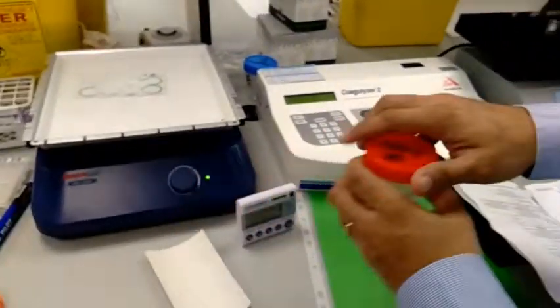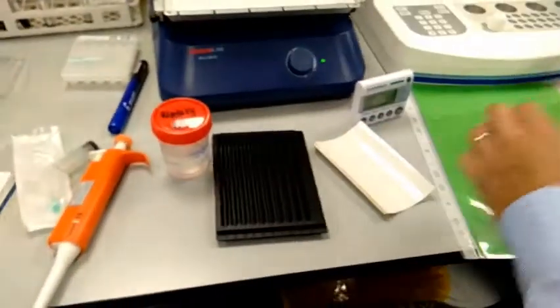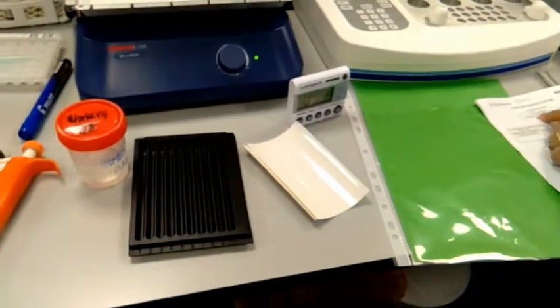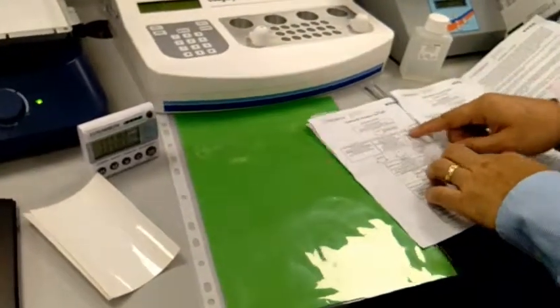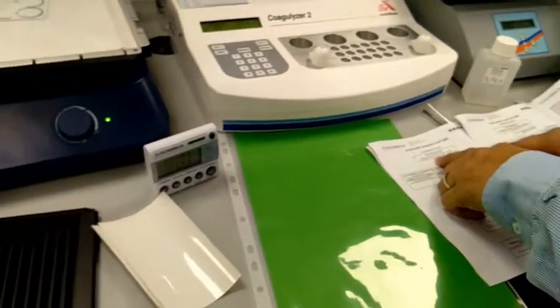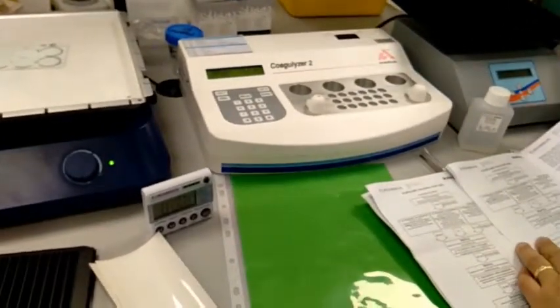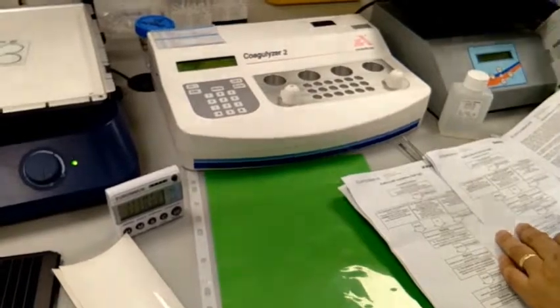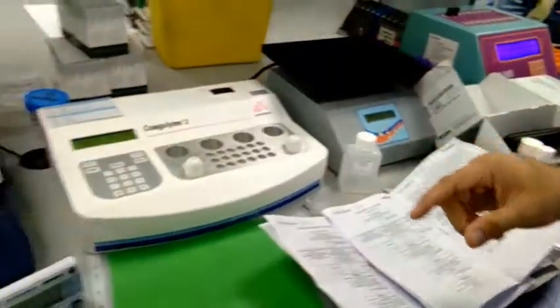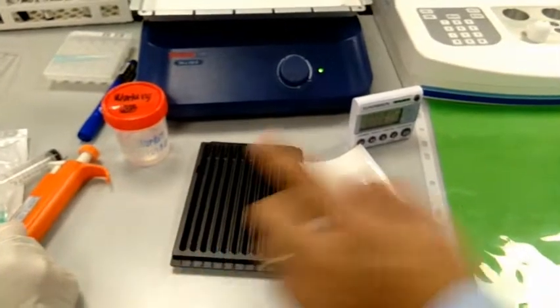Can you put the strip here first? Because there is a pre-treatment in the incubation protocol. We have to put the strip on the well, and then pipet 1 ml of working strength universal buffer. Then we have to incubate on the rocking shaker for 5 minutes. After 5 minutes, pipet off the working solution.